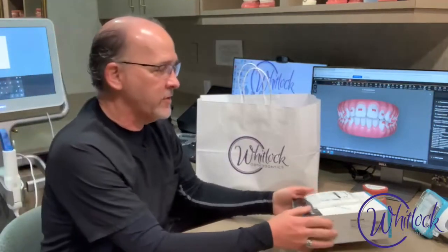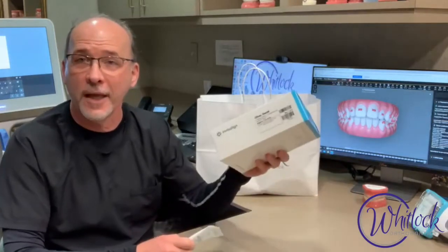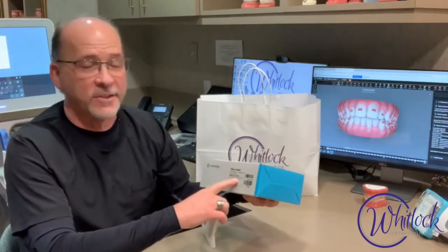One of the important things that you got were your aligners. They came in these boxes here. You'll notice that it has the number of aligners on there. That's not always going to be the final set — that's just this first stage, and we'll go over that with you too.